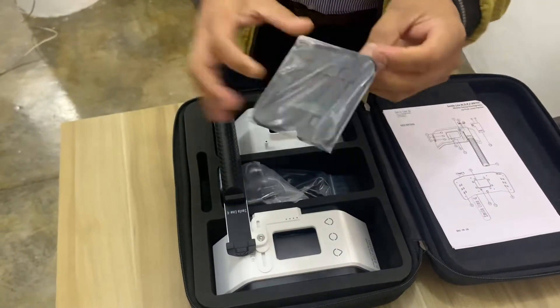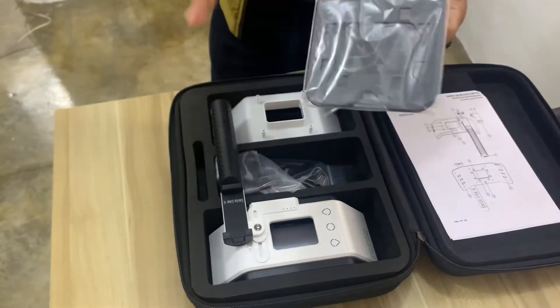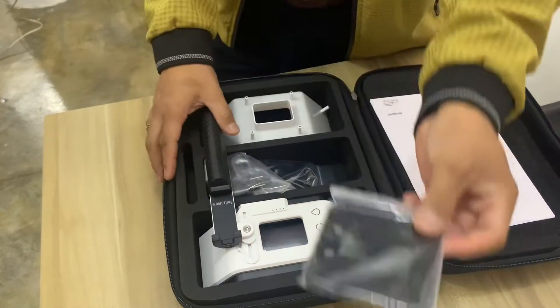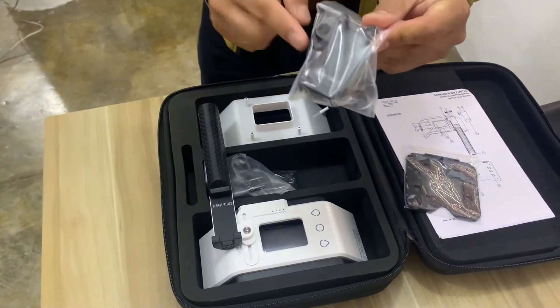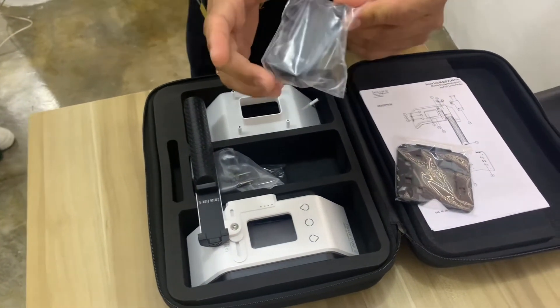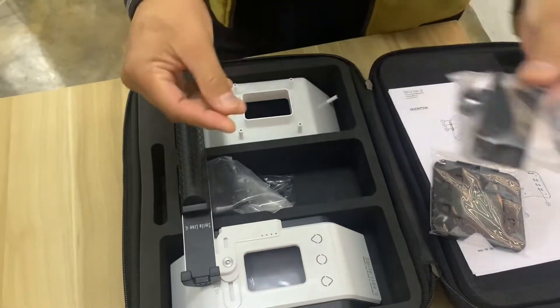The polarizer is now bigger — we usually use this for shade taking. We'll put this here. And we have the holder for your mobile or cell phone, which can also be adjusted.